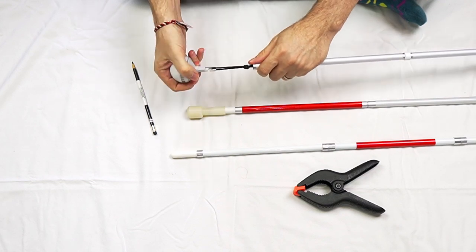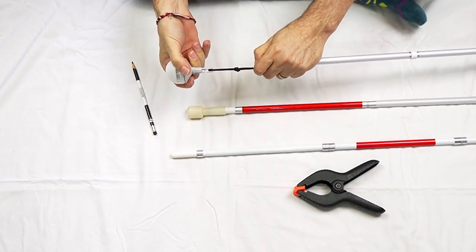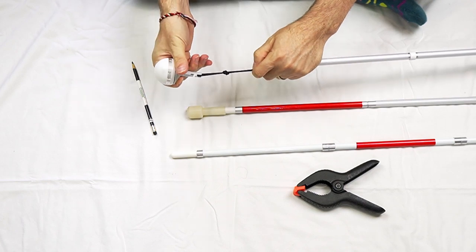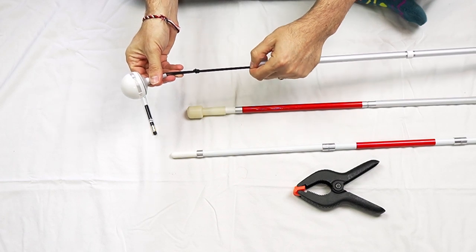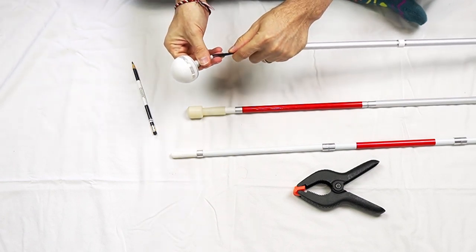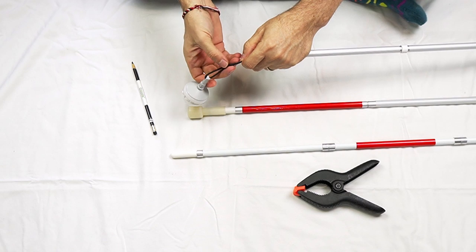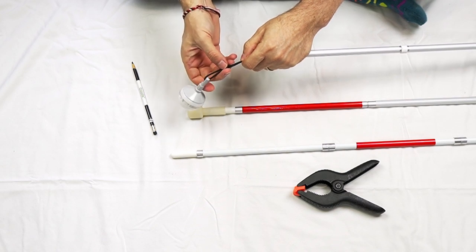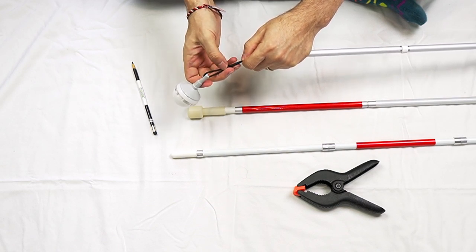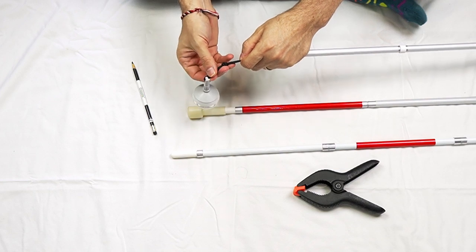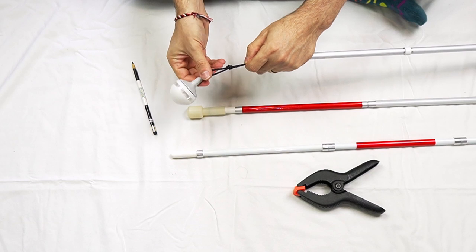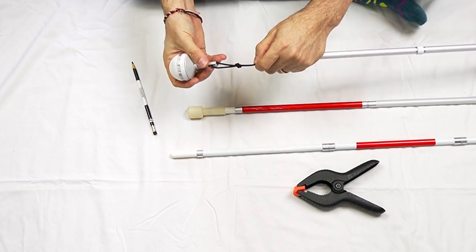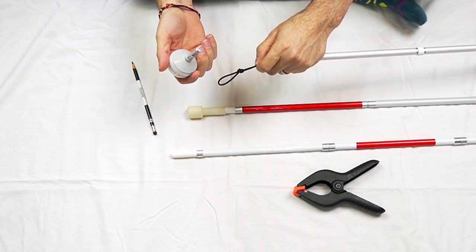What you want to do is just pull out, pull the tip out of the base of the cane. And this one here we can see has a loop. It's actually two cords running down ending in a loop, but they've also tied a knot at the end. So there's a knot with a small, probably about two or three inch loop at the base. And this is just wrapped around the hook. In fact, it came right off.